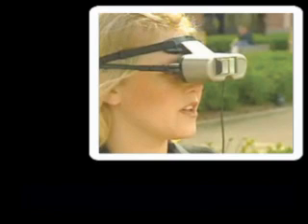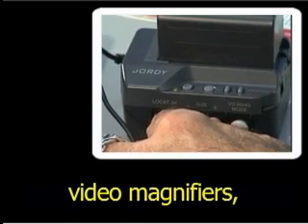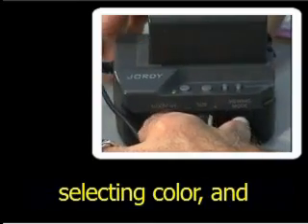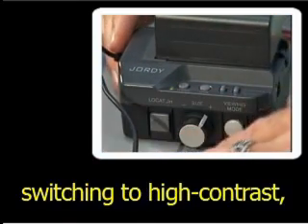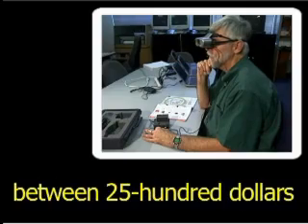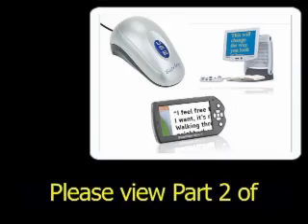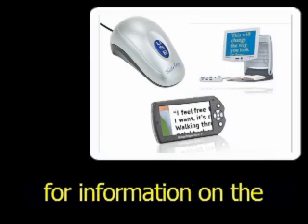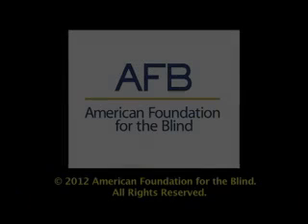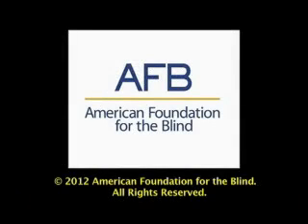Users are featured outdoors or examining equipment on a work table. Like most other video magnifiers, this system also has adjustments for enlargement, selecting color, and switching to high-contrast positive and negative black and white image. Head-mounted models range between $2,500 and $3,500. Please view Part 2 of video magnifiers for information on the other types of video magnifiers. Copyright 2012, American Foundation for the Blind. All rights reserved.